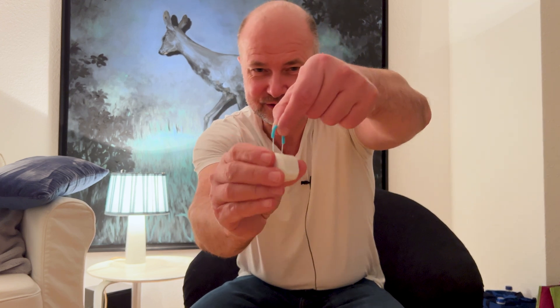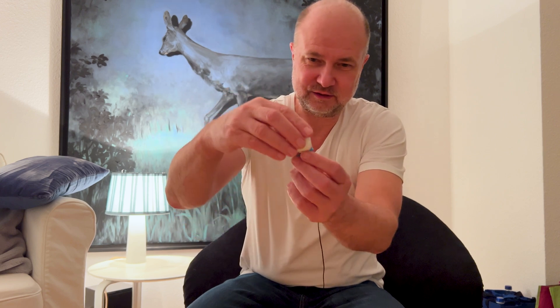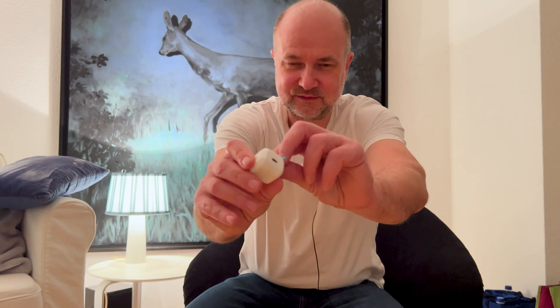And of course, I tried that myself. It's time to go to bed and I'm very tired. So I will mount this thing onto, you know what. In order to do that, you just pull it out here, place it onto the organ, and of course you have to remove the adhesive tape before that so it stays on. I'm very excited to see what comes out of it.